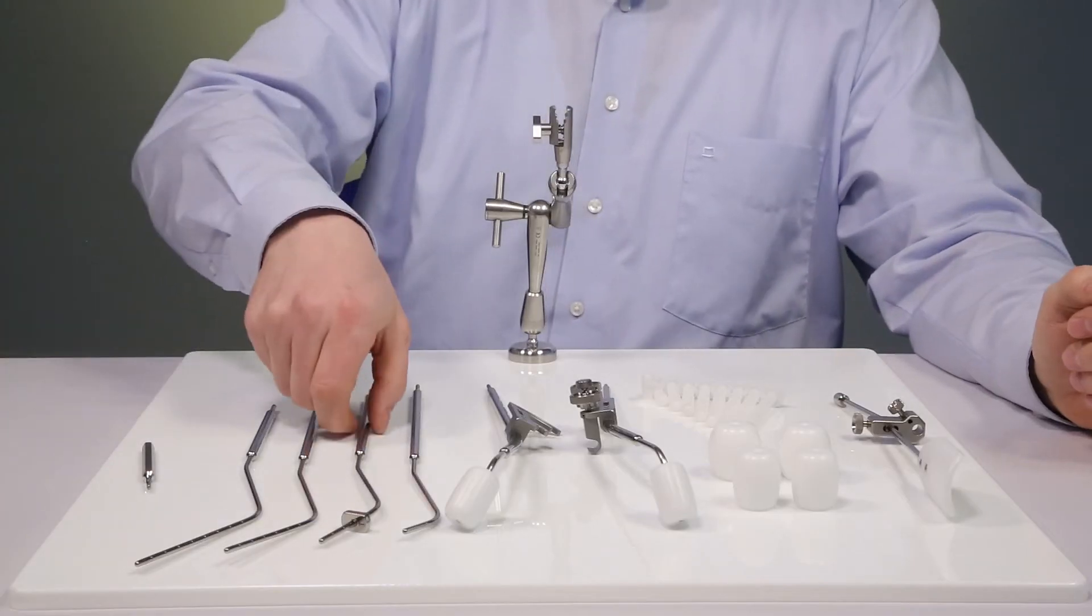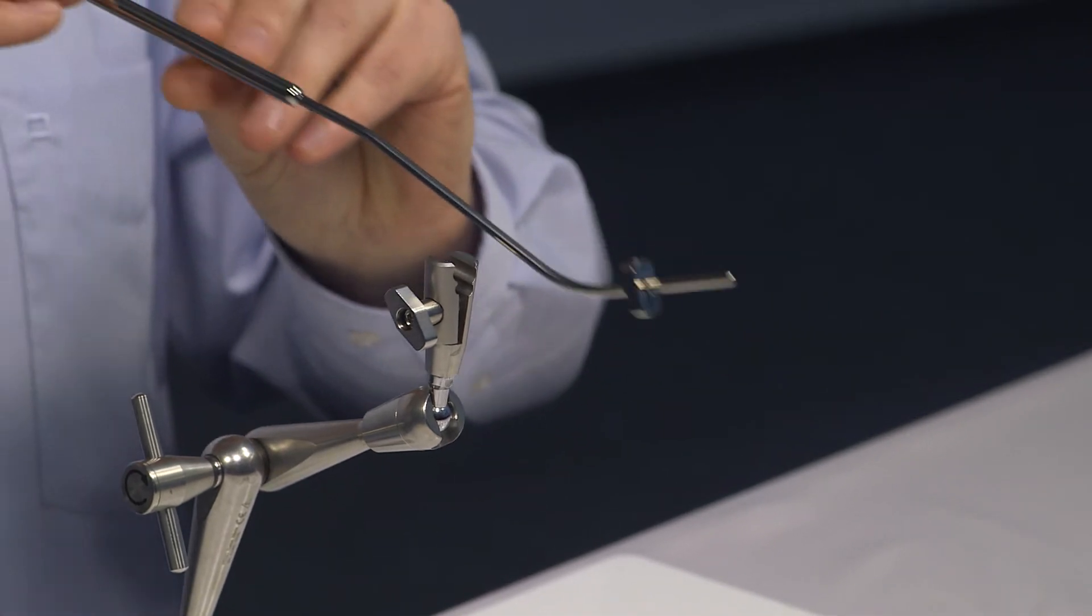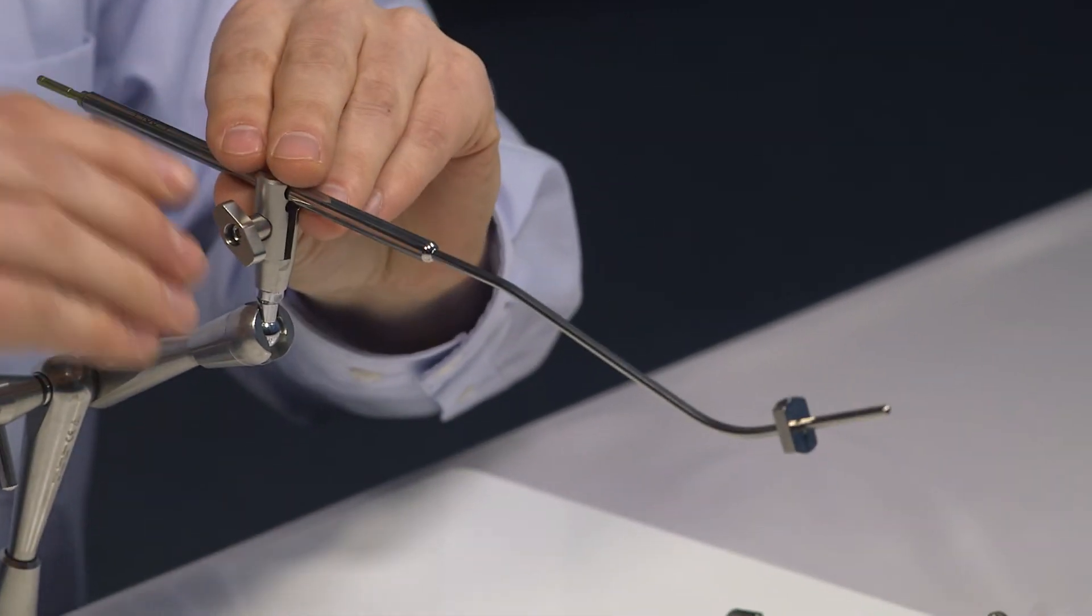The IU tube is inserted first. For demonstration purposes I will do this without a cervix model.